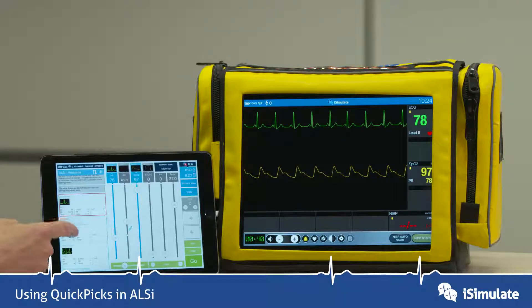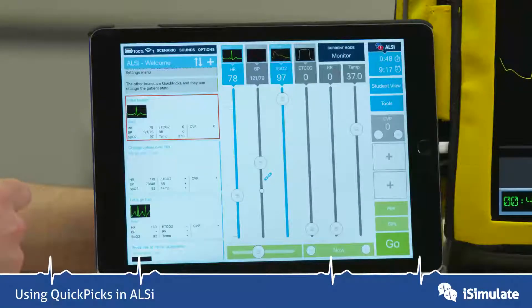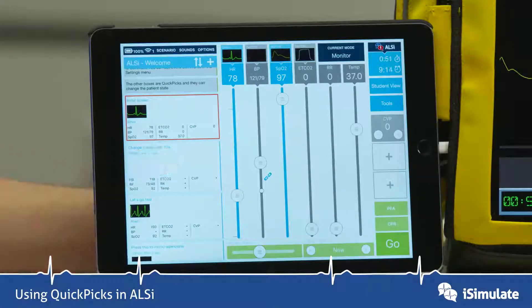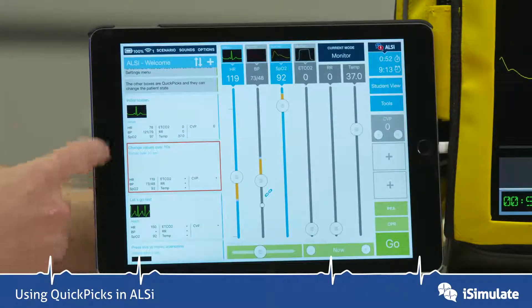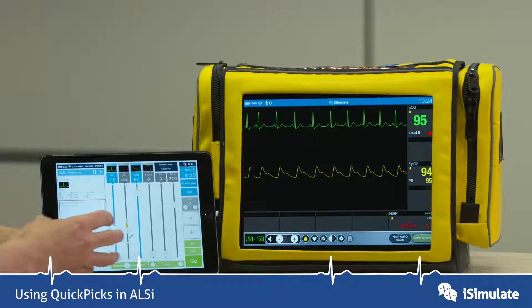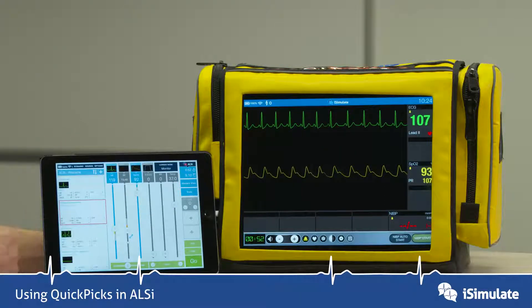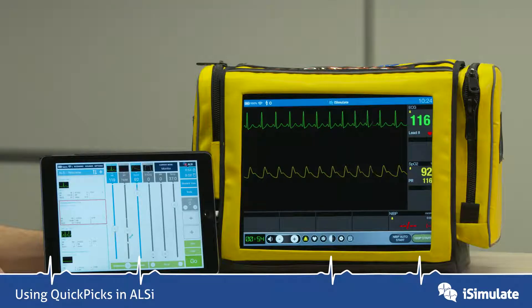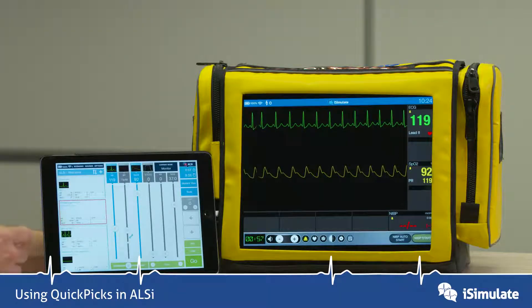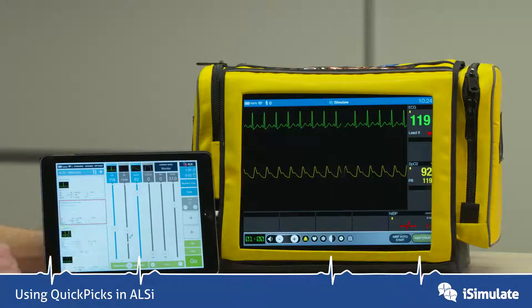By tapping on the next QuickPix it says change values over 10 seconds. So let's do that. We tap on that and as you can see, this QuickPix has been programmed to do trending of the heart rate, the blood pressure and the SPO2. So QuickPix can have instant trending of multiple parameters.